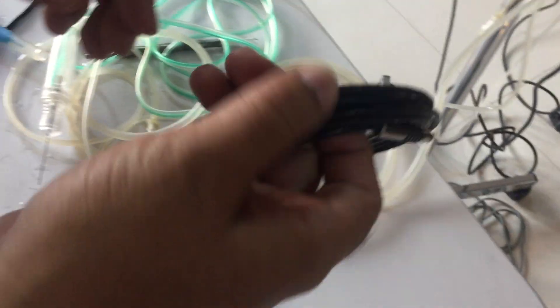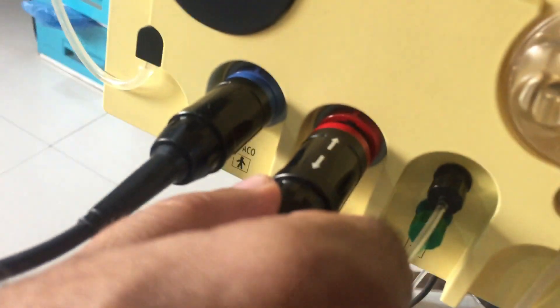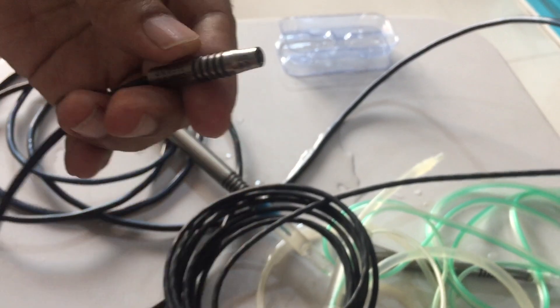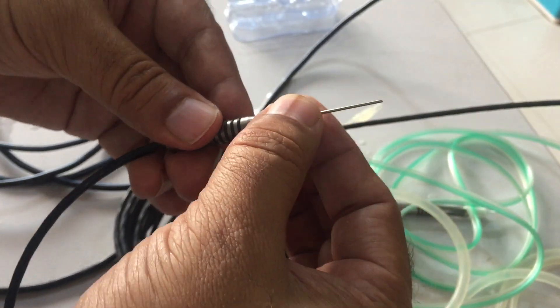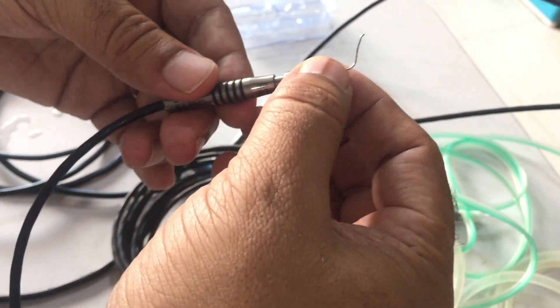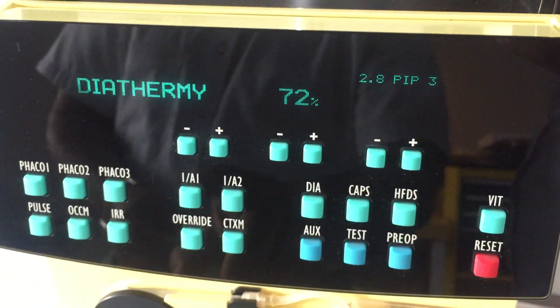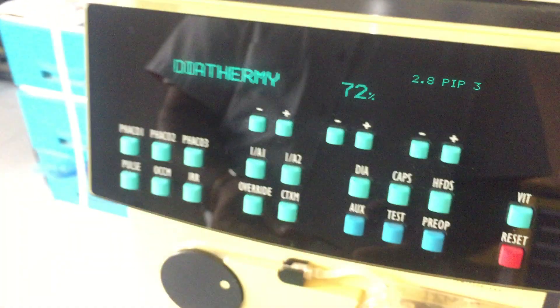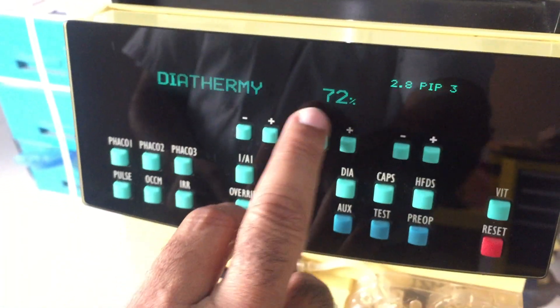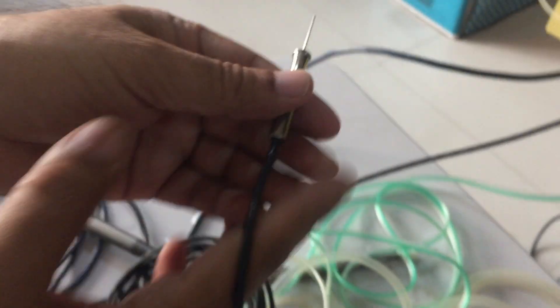Here is the handpiece for diathermy. The diathermy handpiece has one connector and this is the pole for the diathermy. Connect the diathermy handpiece to the machine. You can connect any diathermy instrument such as bipolar forceps, eraser tip, or capsulotomy tip. Press the 'DIA' button and you will get the function on the display. You can adjust the power from 0 to 100% on the panel using the two buttons.